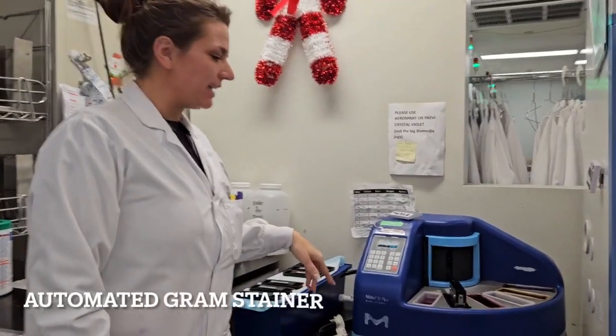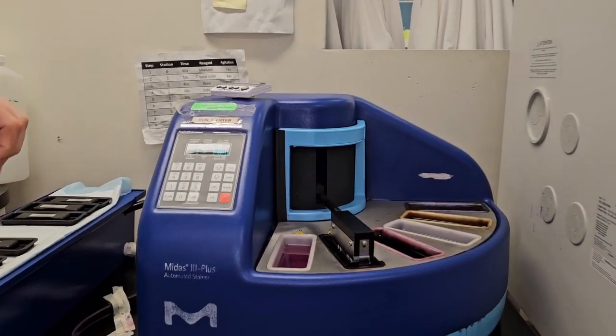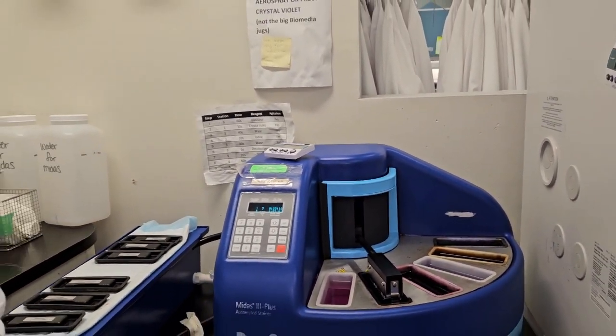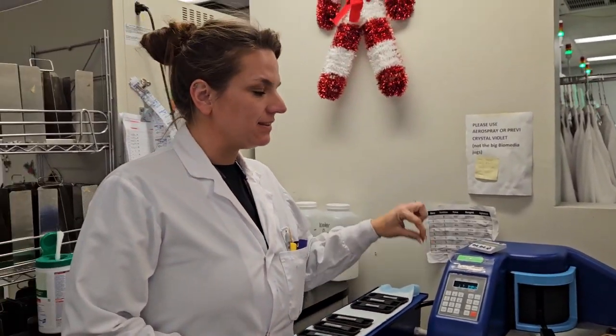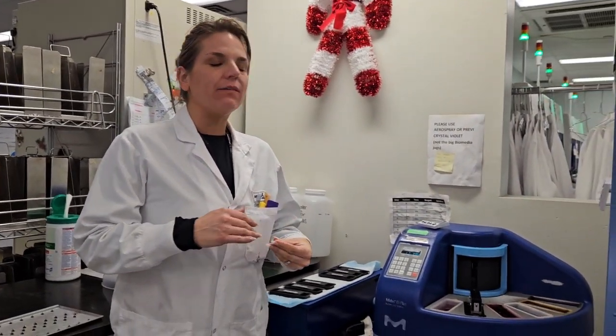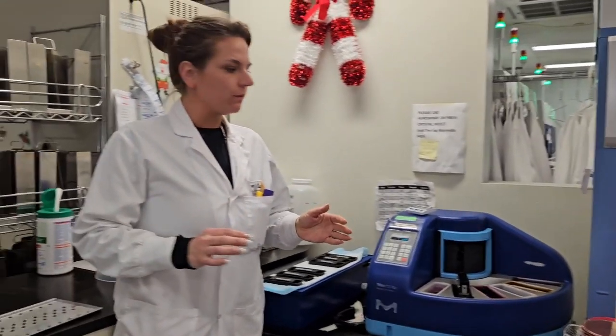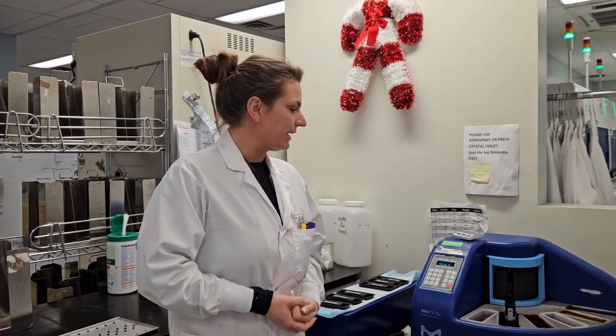This is our Midas stainer. It is one of the best automatic stainers for gram stain. It most accurately mimics doing a hand gram stain. It uses a dip protocol, so you don't have stain spraying on it. You tend to have a lot of over-decolorization when that happens. The Midas stainer is wonderful for staining bacteria of all sample types. We will stain blood cultures, spinal fluids, sputums, everything on here.